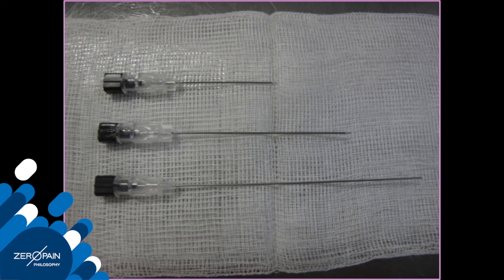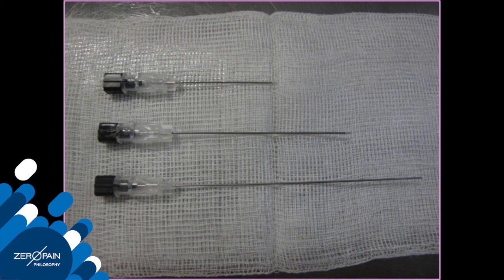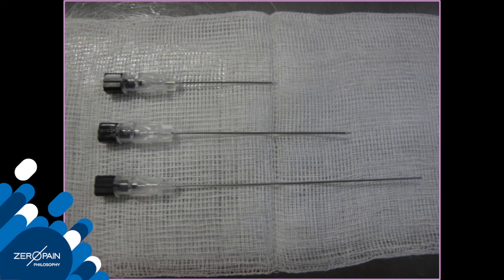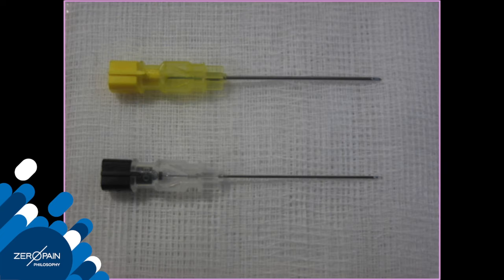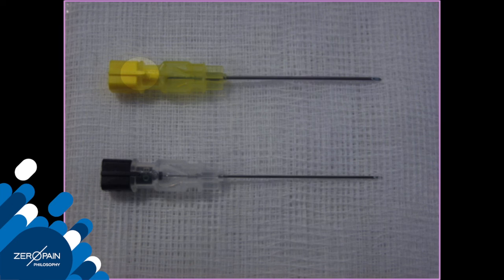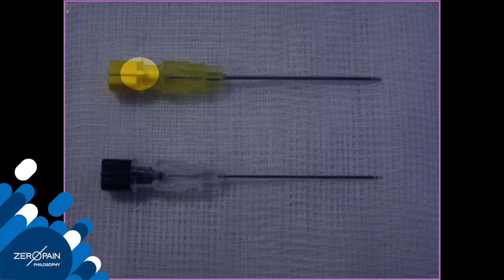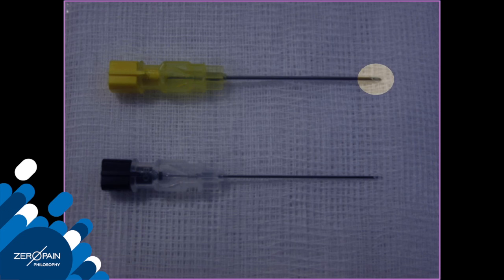Spinal needles come in a variety of sizes. Depicted here are 22 gauge needles which are one and a half, two and a half, and three and a half inches long. The black needle shown here is a 22 gauge needle and the yellow a 20 gauge. Note the notch on the stylet which indicates the direction in which the bevel is pointing.